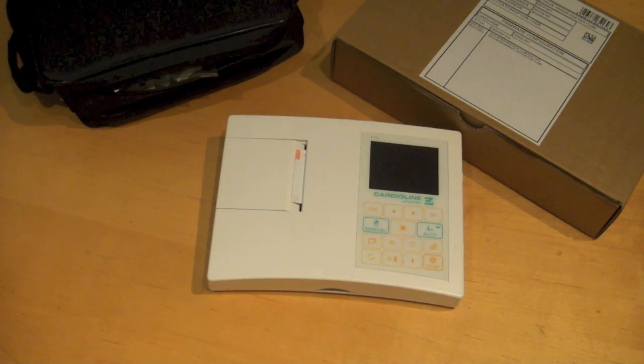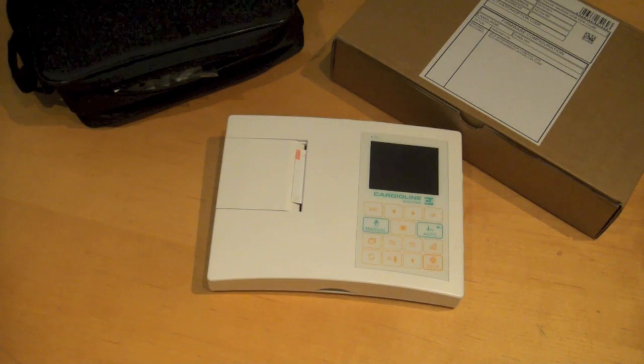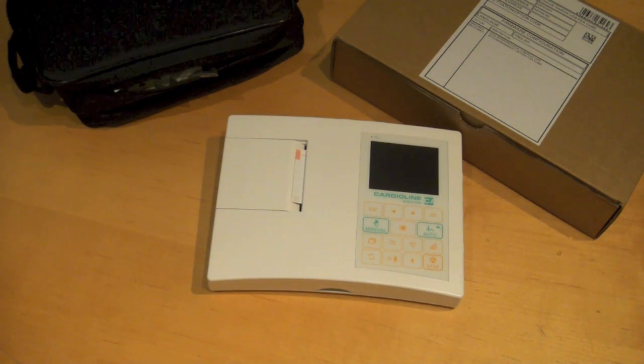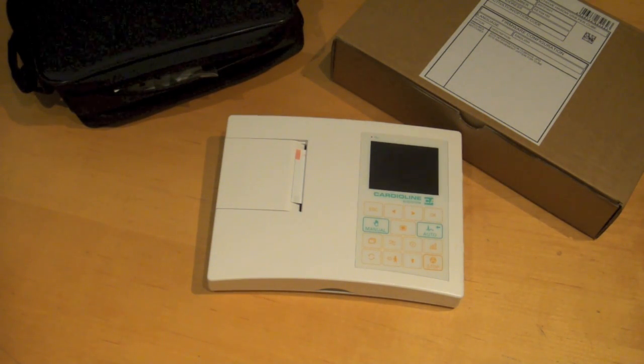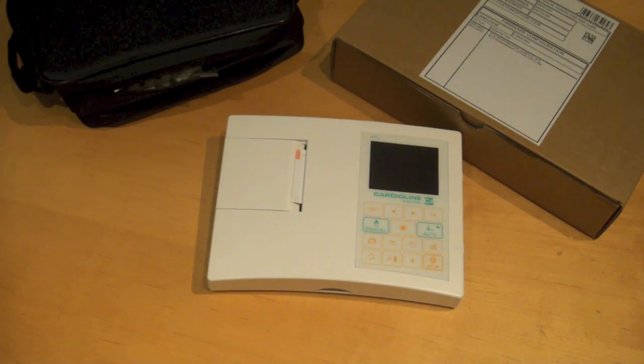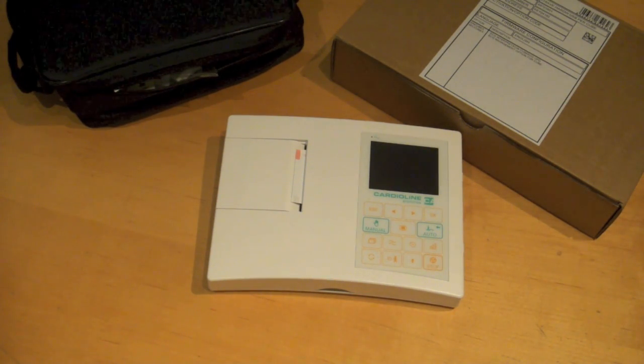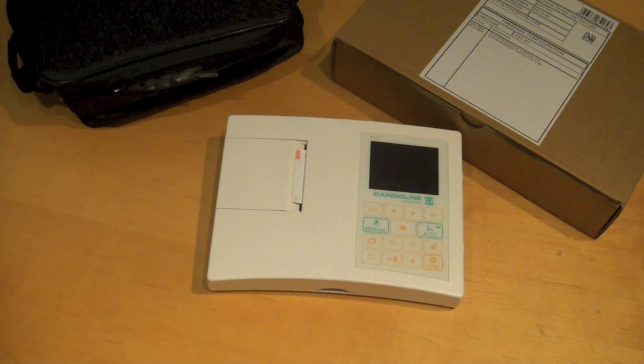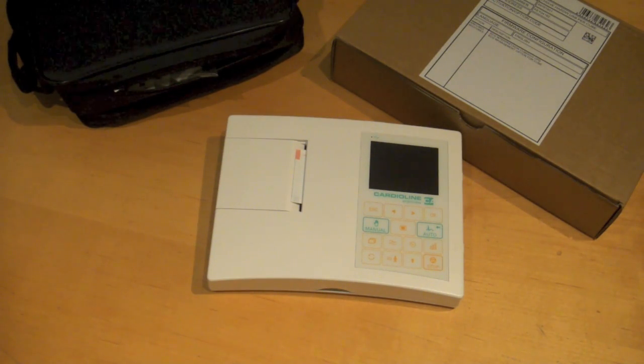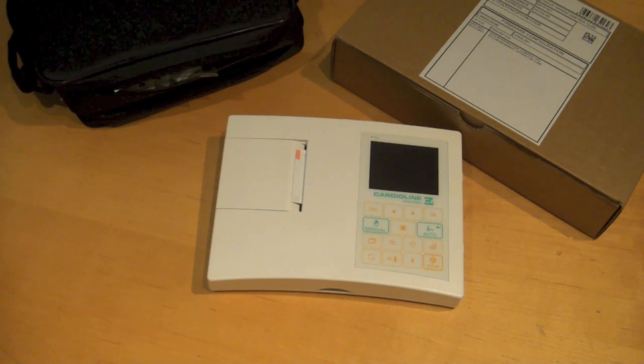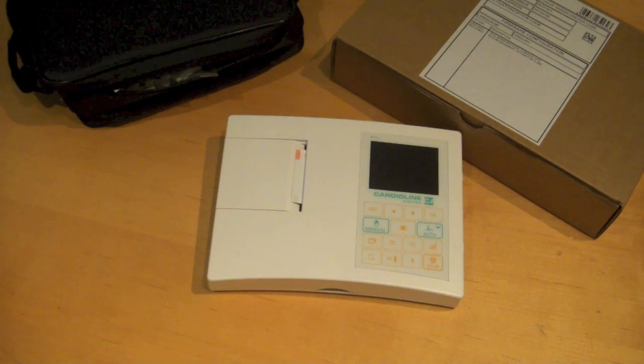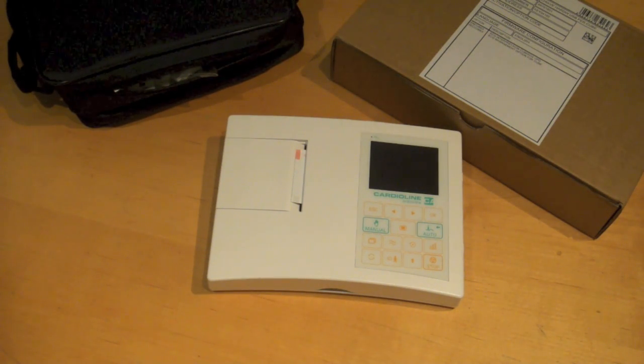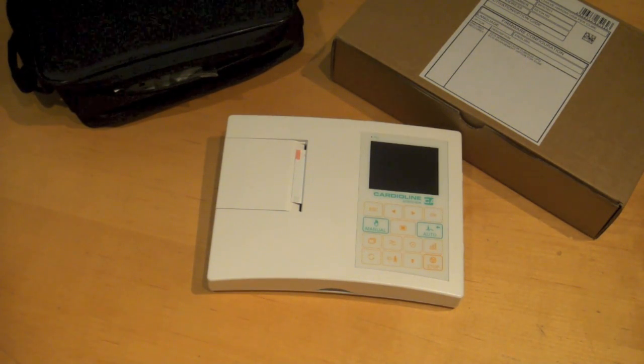Interpretation and memory are standard with the AR600. We will not be selling it as a non-interpreted version. It is a full 12-lead EKG with a 10-lead patient cable, and it prints on strip paper three leads at a time. So it's perfect for the mobile professional, insurance examiner situations like that.